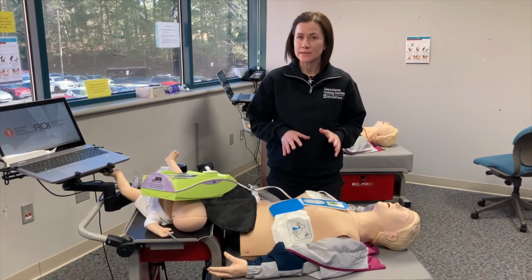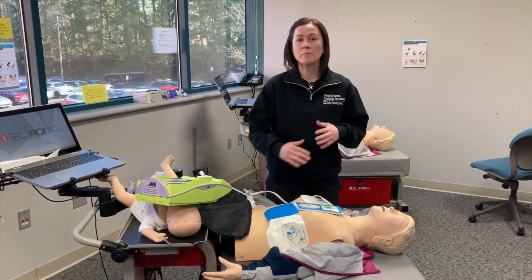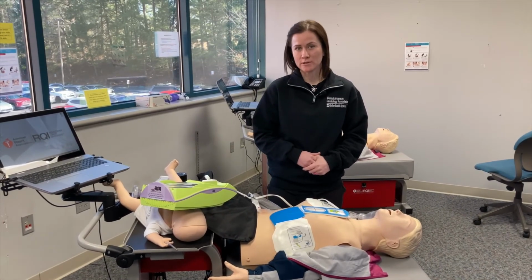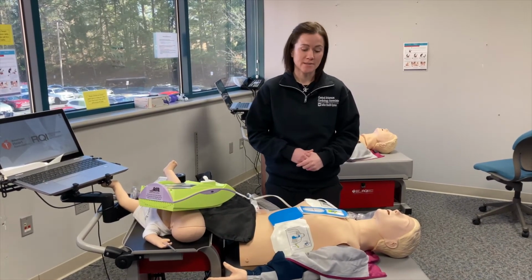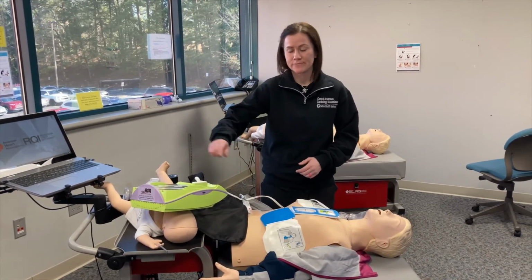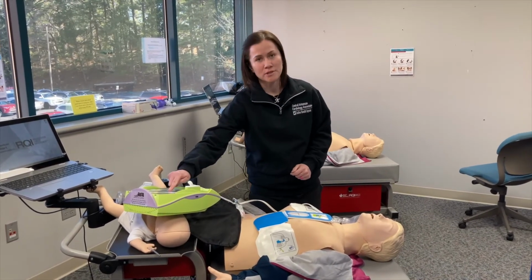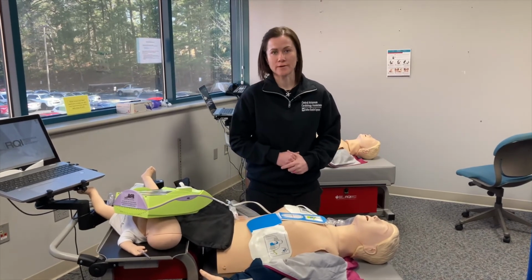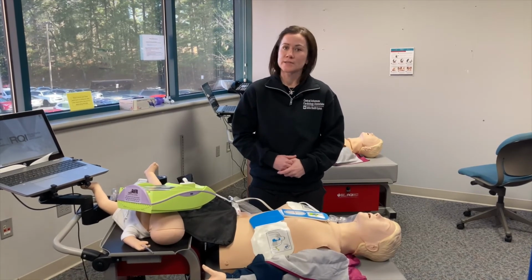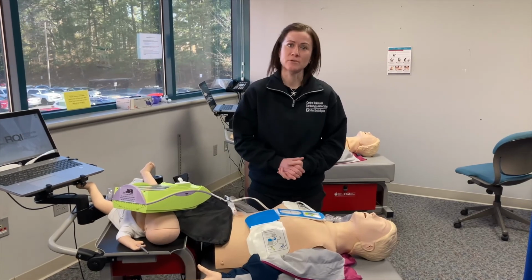If there is a dangerous heart rhythm that led to the cardiac arrest, or at some point the patient has that dangerous heart rhythm, it's going to let you know that it wants to deliver a shock. In that case, it will tell you all clear, and then you push the button here to deliver a shock. Afterwards, it will tell you to reinitiate CPR. And essentially, you're going to continue this until emergency medical services is able to take over.